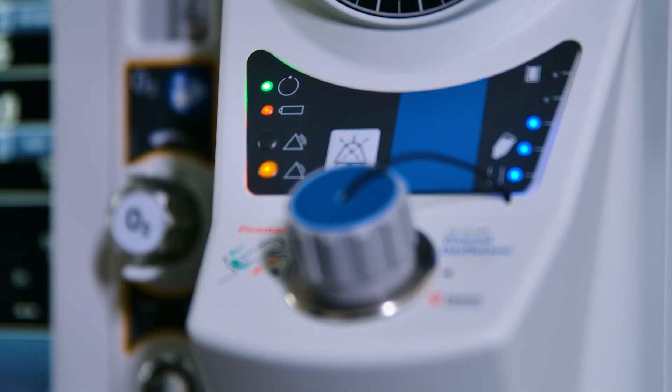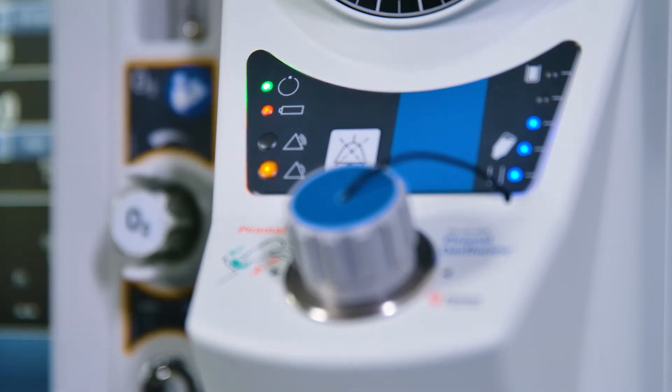If the battery is in a charged state, changeover is instantaneous if the mains power supply fails. The vaporizer remains in operating mode. When the battery is in use, a periodically repeated single audio tone sounds and the indicator will flash.